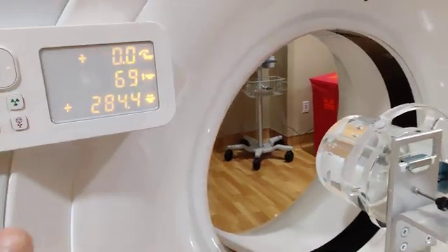Okay, and then this is just your instructions on how to do everything. If you ever have some free time and you're looking for reading material, you can go into the question mark here and it talks all about the harmonized phantoms, if you ever have questions about any of it.